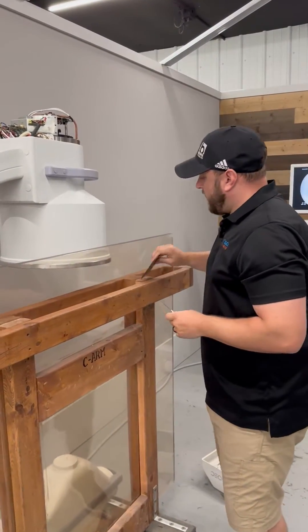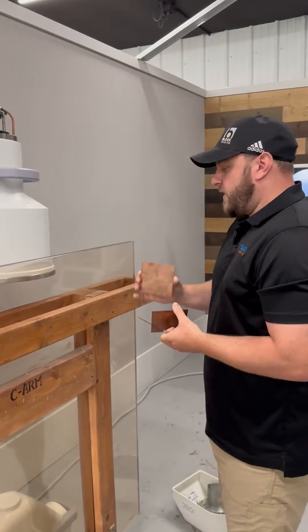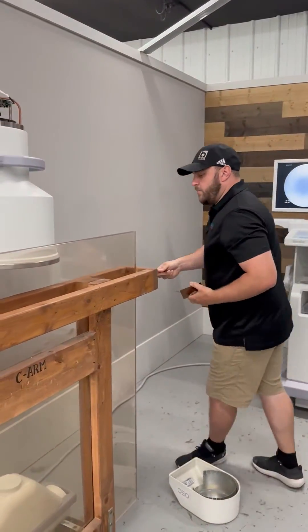Once we have access to our camera, we're going to need a six flute spline tool and three sheets of one millimeter thick copper.